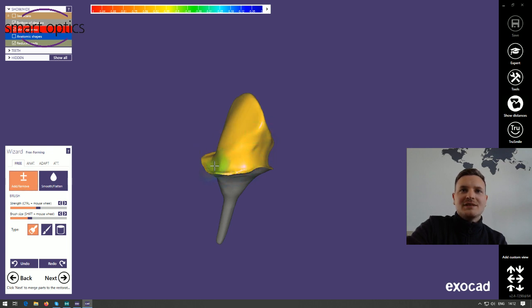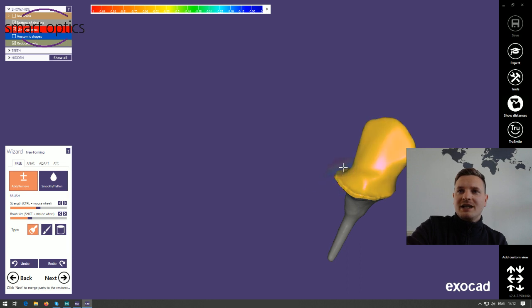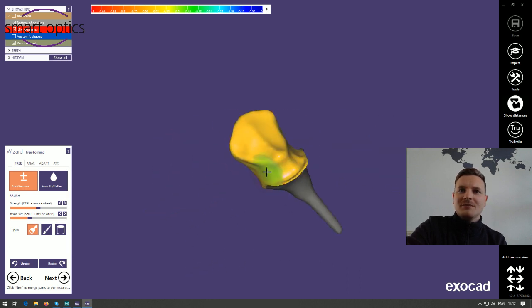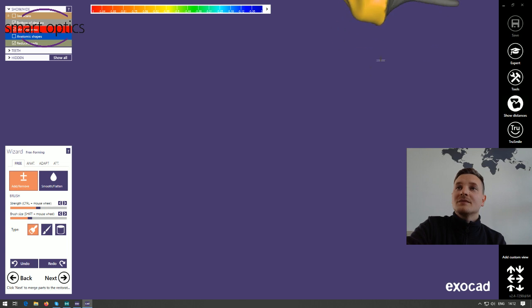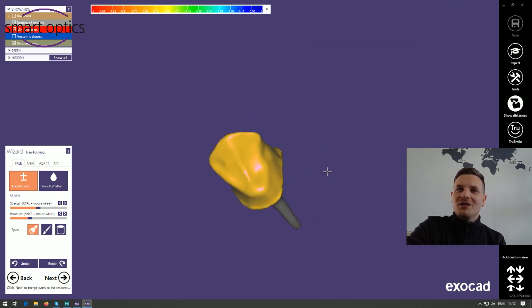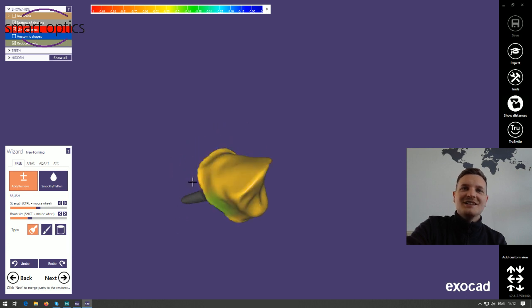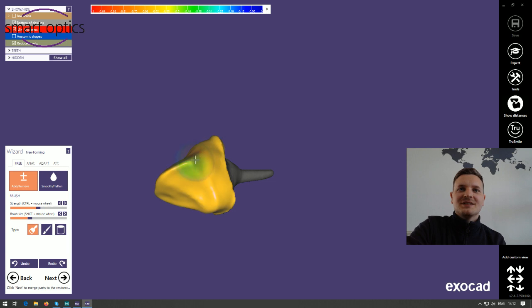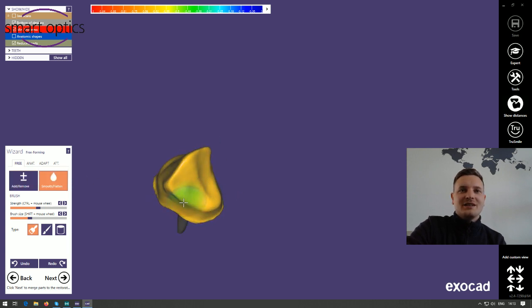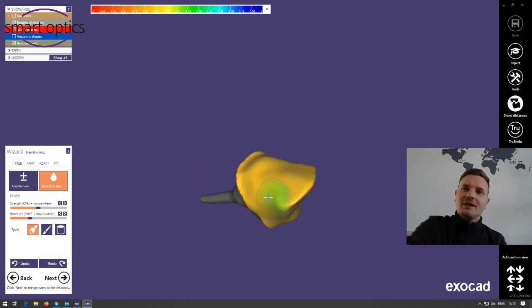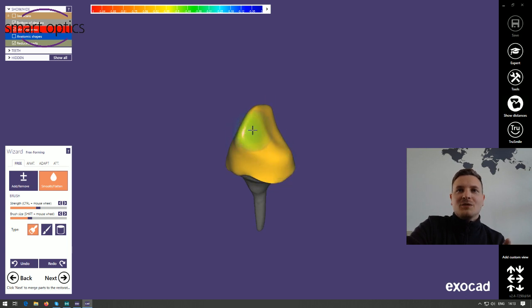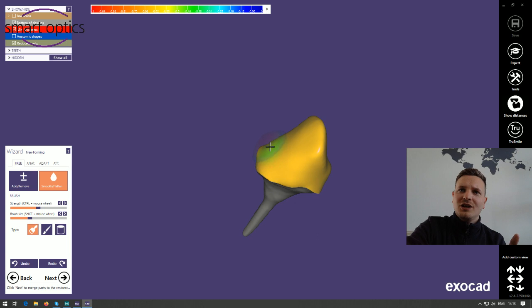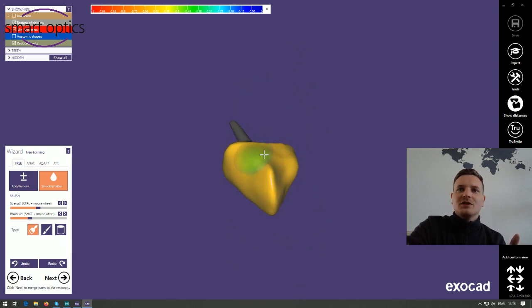The stump will be shrunk and now I have the freeforming again. I'll add some material in this area so I don't have any undercuts. I'm missing my 3D mouse so it's moving a little slowly by hand. I add some areas and smooth them to get a smooth surface. You can also add attachments or retentions to the post and core if you want, but this should be fine. I'll say next.